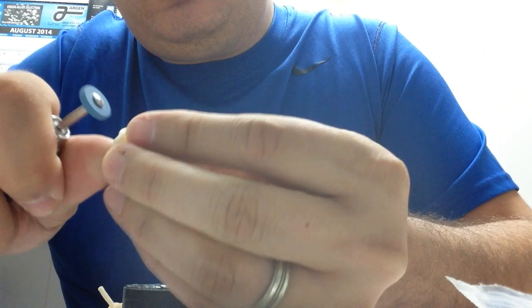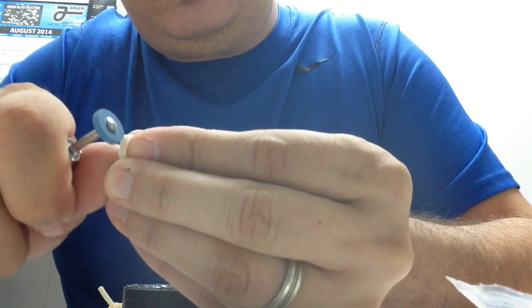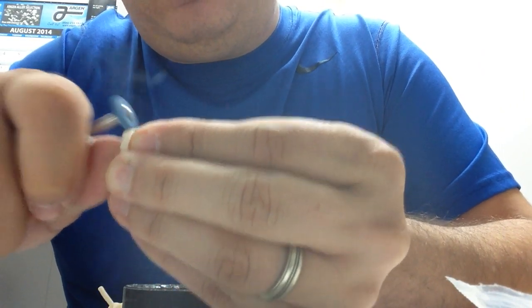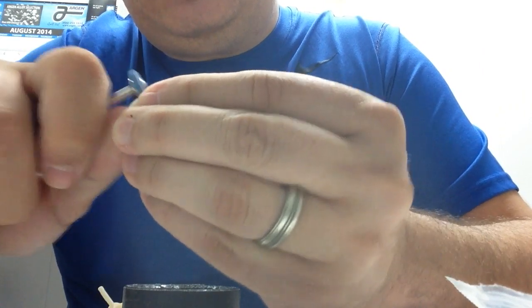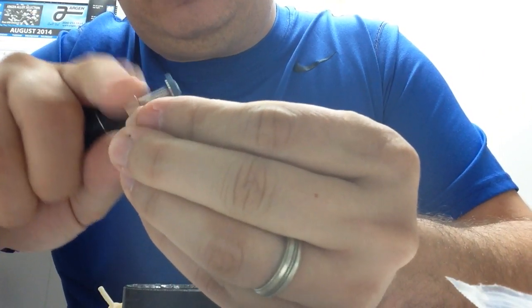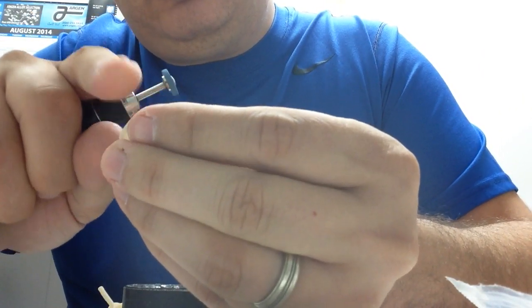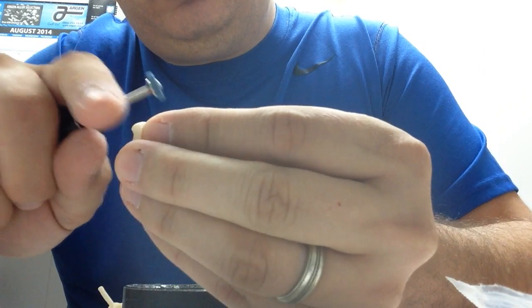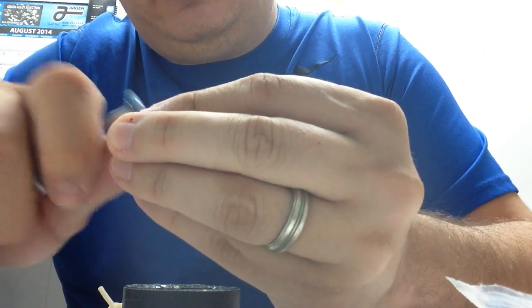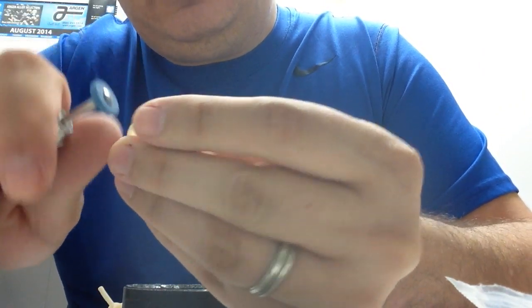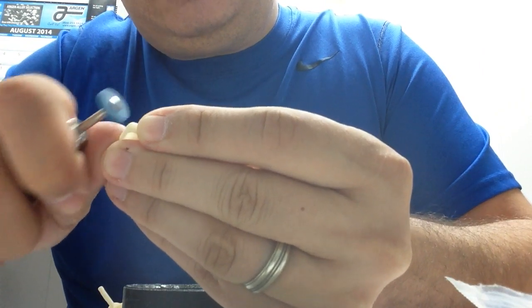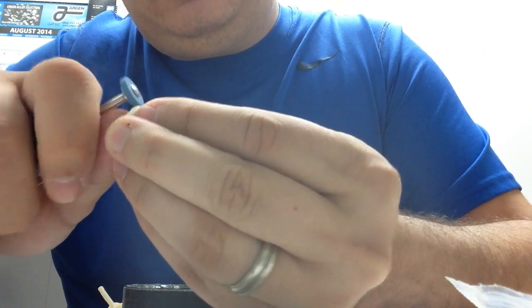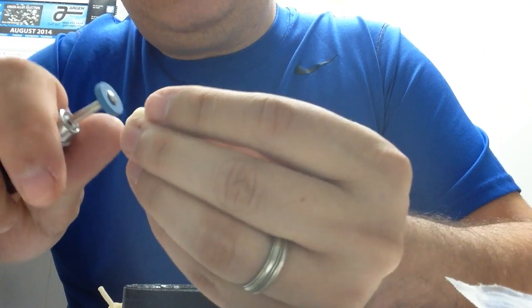And just go over the sprue spot and polish it so it will be flush with the rest of the crown. And don't apply any pressure. Don't be on one spot for a long period of time because it will heat up. Just little by little.